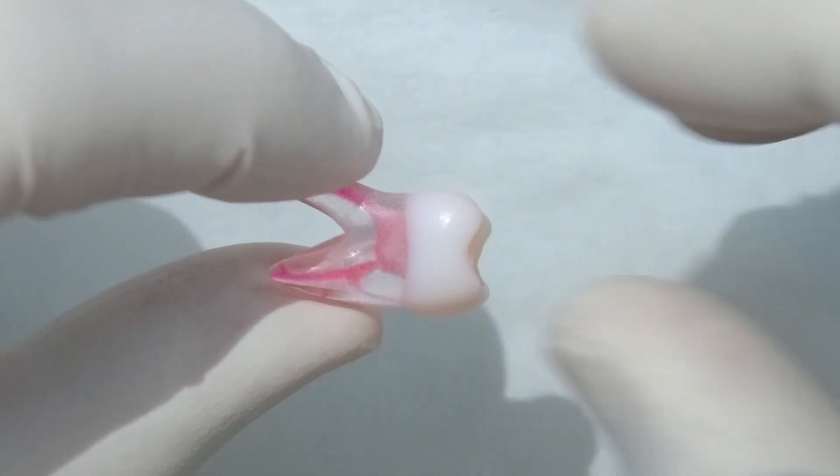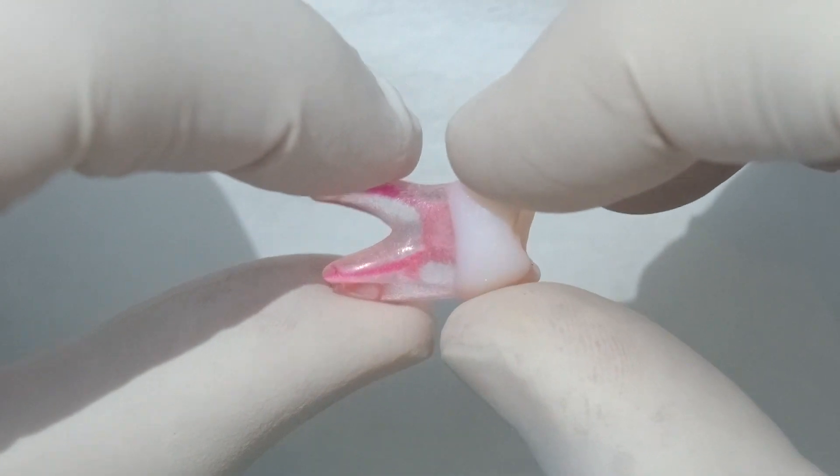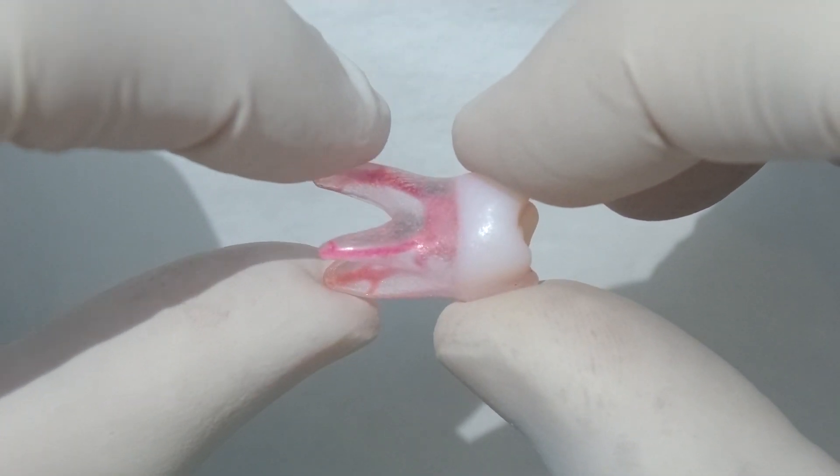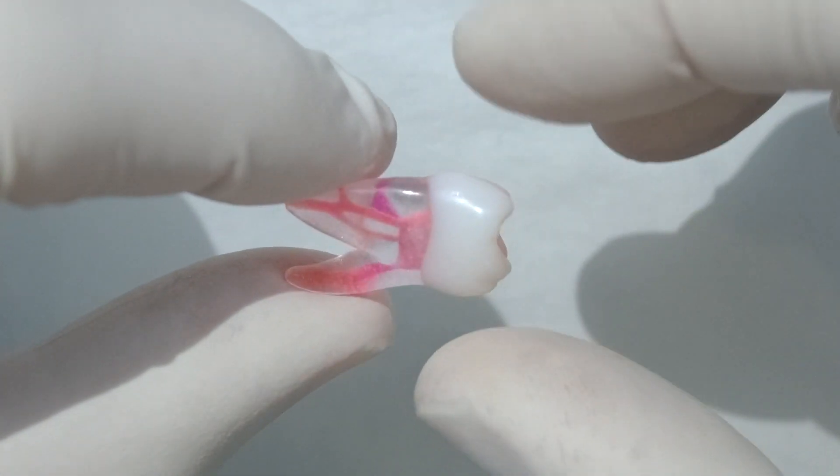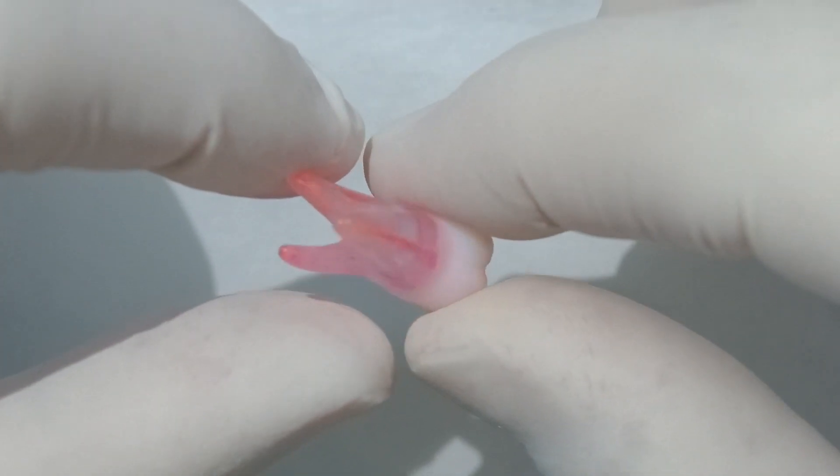Hi everyone, I'm Charlie Nicholas, I'm the owner at Endo Perfection. I've just put together a quick video to show you how we use our VFR reciprocating files. Today we're going to use the Endo Reality 3D printed teeth. These are great teeth to demonstrate and to practice our hands-on endo with.